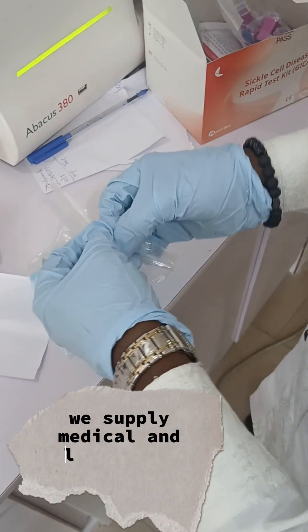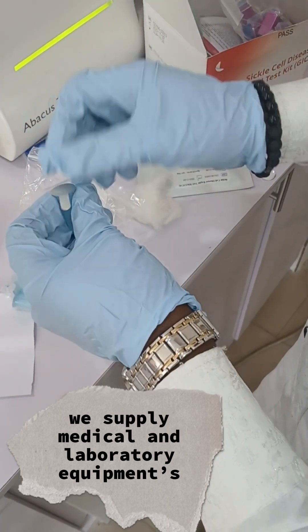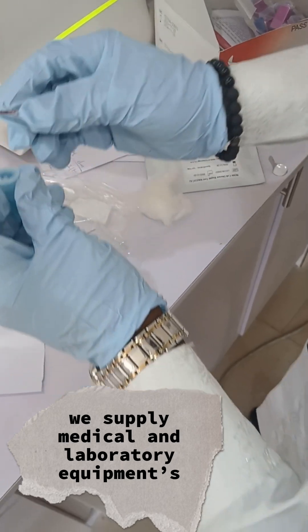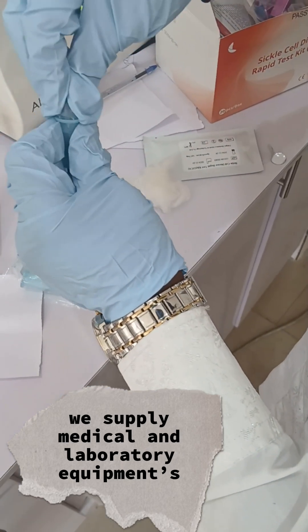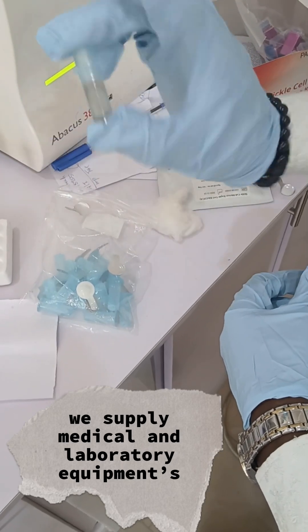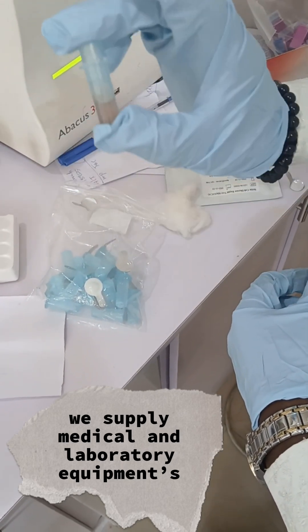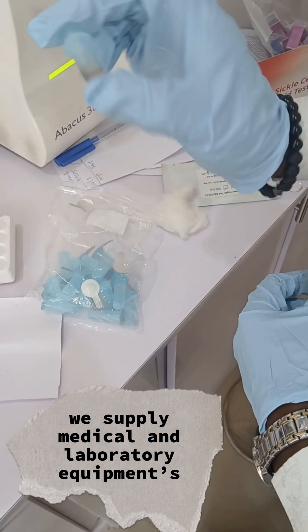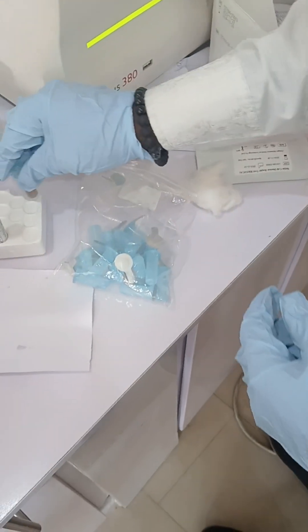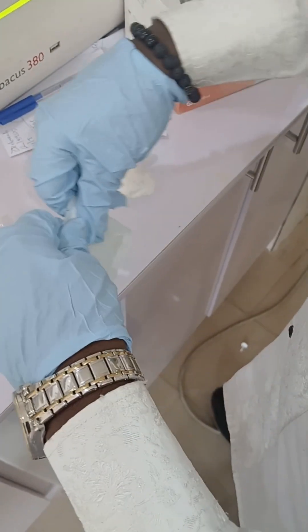Then you get the buffer — each test has a buffer for it. You open up the buffer like this, then insert the capillary tube containing the collected blood sample. You invert it like this and mix it together so all the blood goes inside the buffer. Then just wait for some time with it standing.